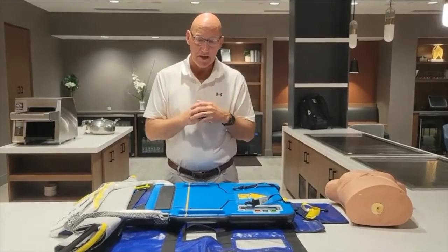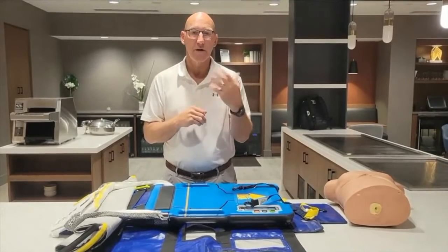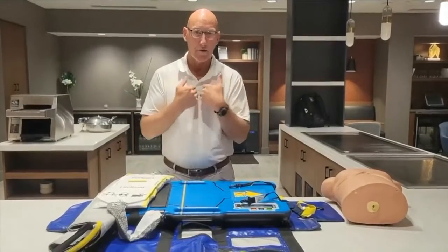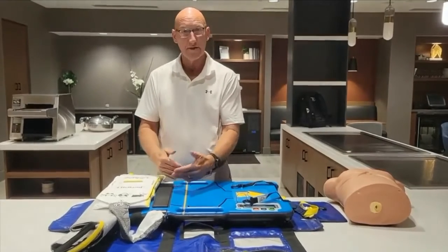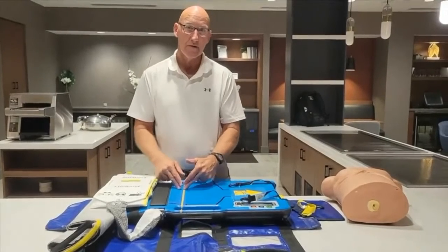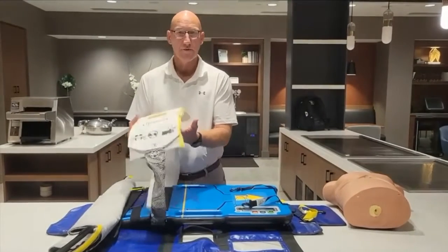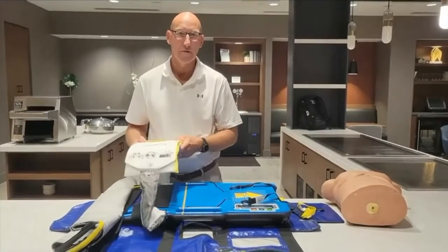To describe that, think about a sponge being put in a bucket of water. If you pull the sponge out, you'd grab it and compress it — it's the same concept with this load band, allowing us to compress the chest wall and engage all four chambers of the heart. The clinical effect is that we're moving near-normal blood flow. Manual CPR provides about 25 to 40%, and a piston-driven device moves about 30% blood flow. Because we circumferentially squeeze the chest wall, we're able to move three times the amount of blood flow, near normal.